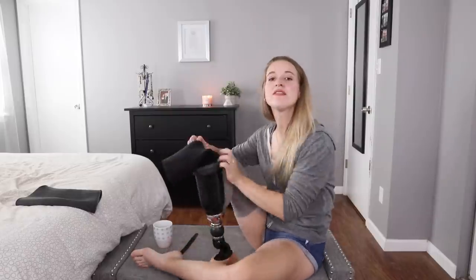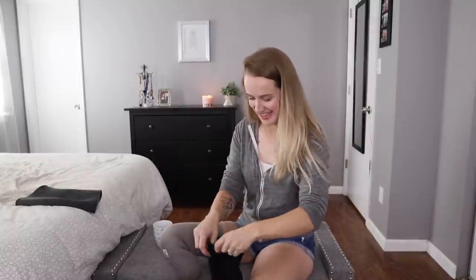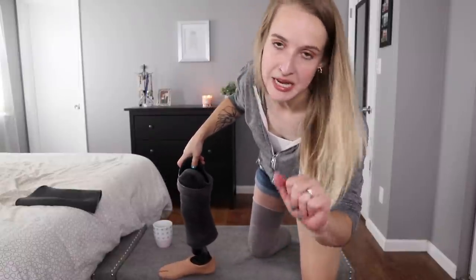I think I did it. One of the things I miss about having a foot is being able to grab hold of things. I used to always grab hold of things with my feet when I was trying to do things, and now it's a little more awkward. This did not go on evenly, but it did go on. You don't want it coming off. You put anything down in my house and it is immediately covered by an insane amount of dog hair — you want a clean house, don't get German Shepherds. And now the moment of truth. I'm gonna trust the process.